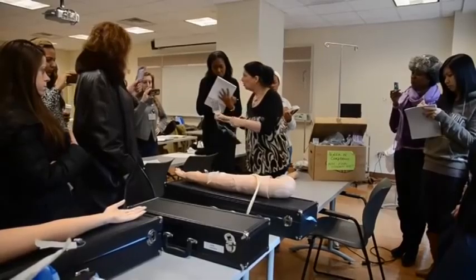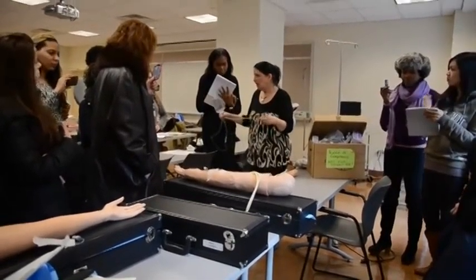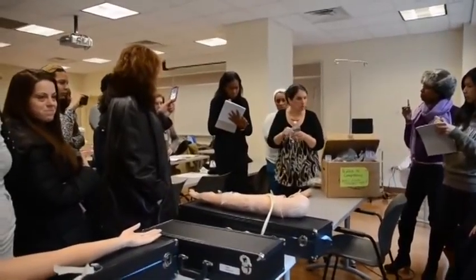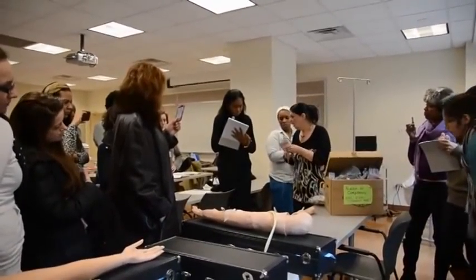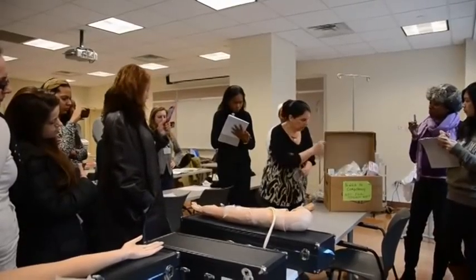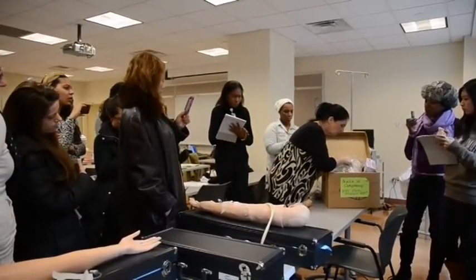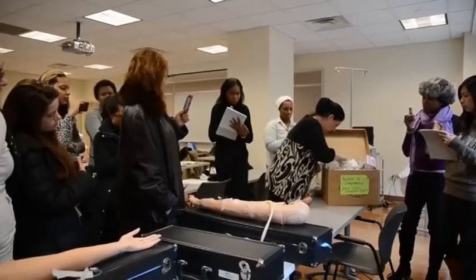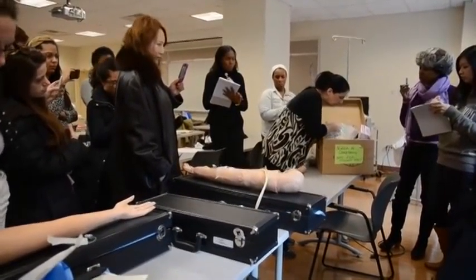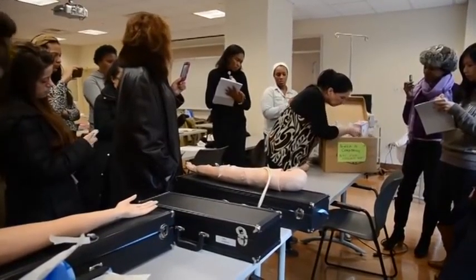Now, if you take 50 or 100, it's okay. You don't have to pick which one is right. And then you come to the bedside, and we'll tell you what's in it. We'll tell you, oh, that's gentamicin — 100 milligrams of gentamicin is in here. And then the label, the med label for the bag. We'll tell you to bring one of those, too.